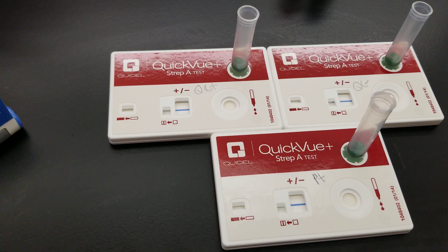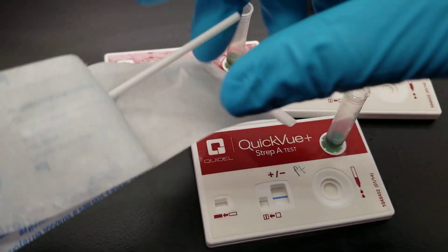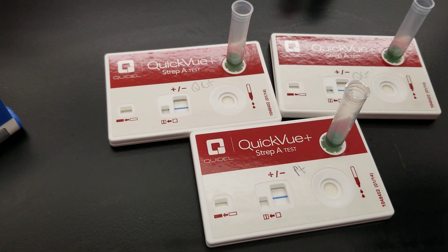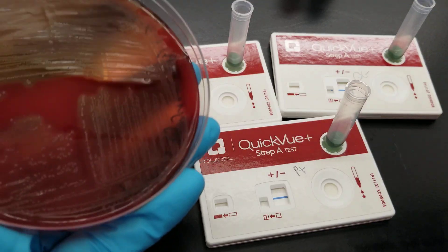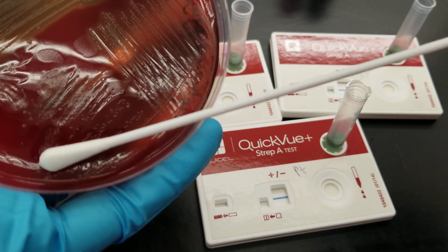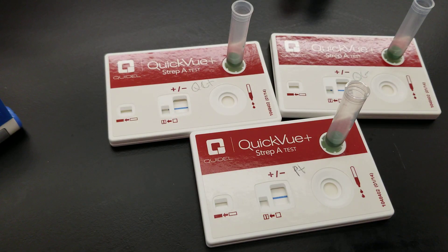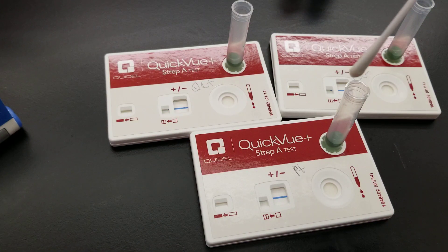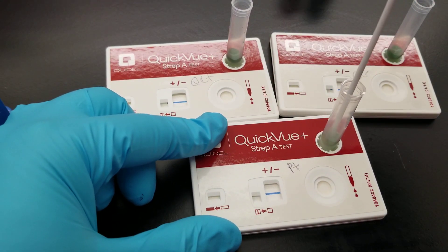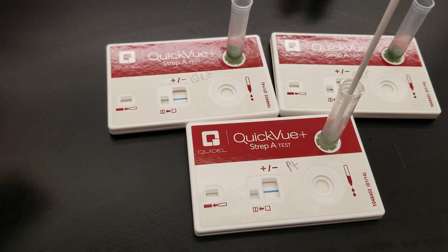I don't have a patient here that I suspect of having strep throat, so I'm pulling the swab out from the end, not letting the tip touch anything. I'm going to take it from my pure culture — this is what my students are going to be doing in class. We'll take from the pure colonies. I've got it on the tip of my swab and we're going to put it in the patient tube, moving it around — twisting and turning it, supposed to be five times. We're going to let it sit for a minute.